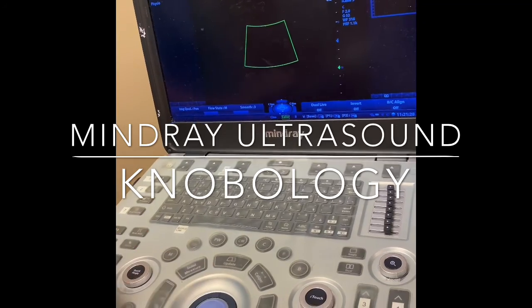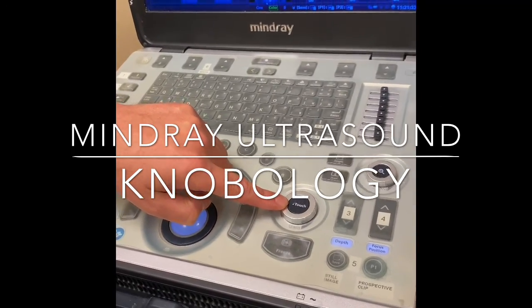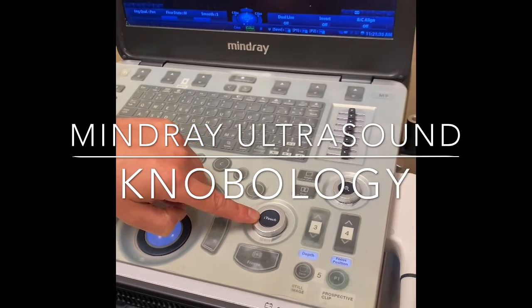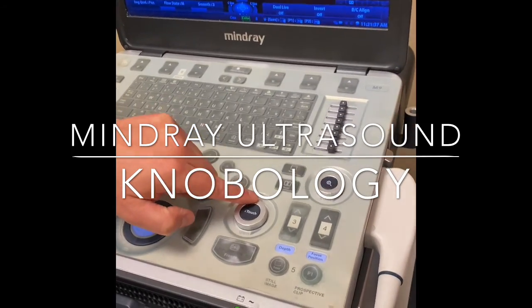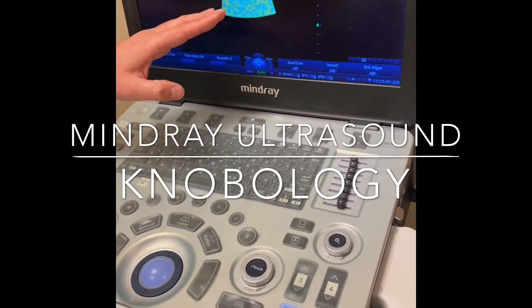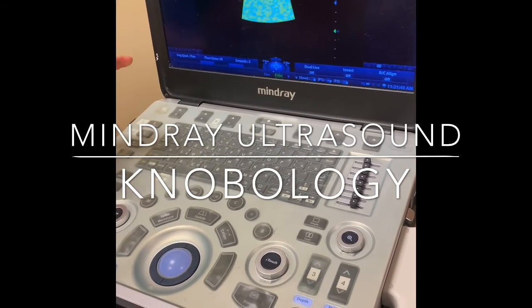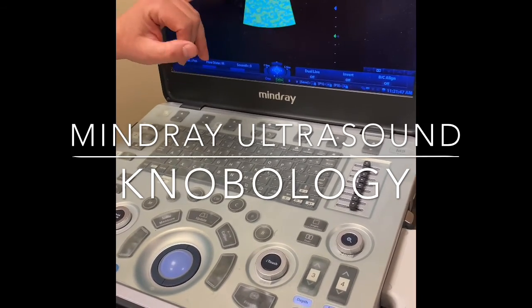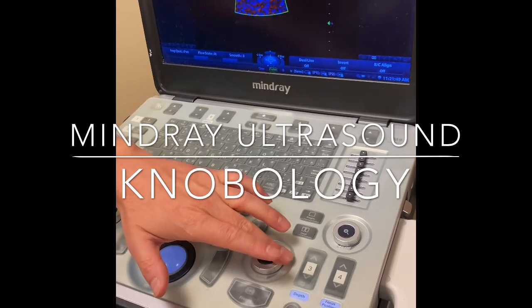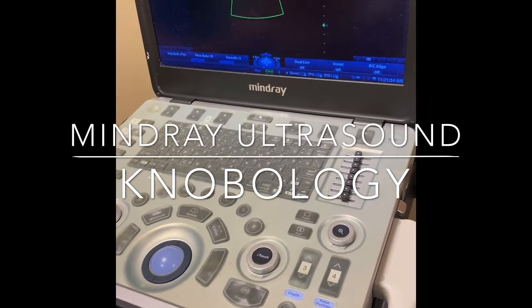When you are in the color flow setting, if you turn the gain knob, this will actually adjust the sensitivity of the color flow. If you turn this up, you could see even right now, without us scanning a patient, you see lots of artifact. If you're scanning a patient and you see too much color flow or too much artifact, you can turn down the gain. So you can adjust the gain up and down to optimize that setting.